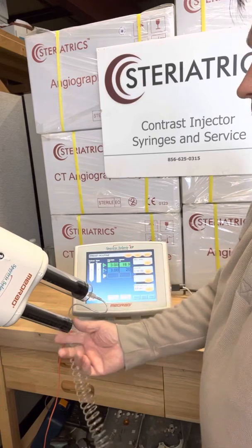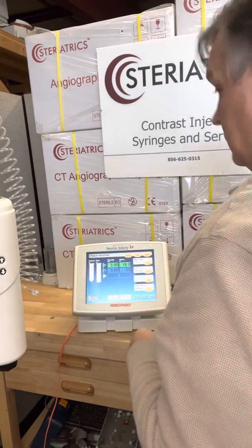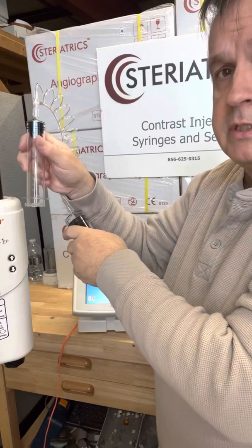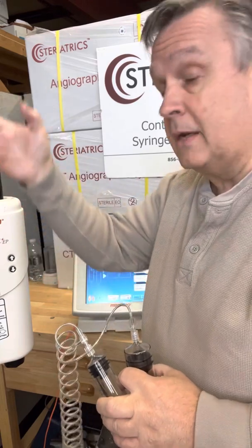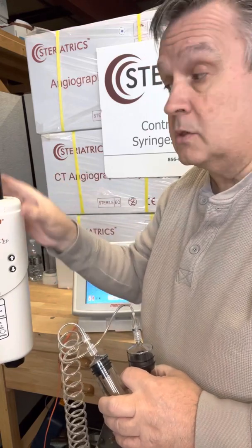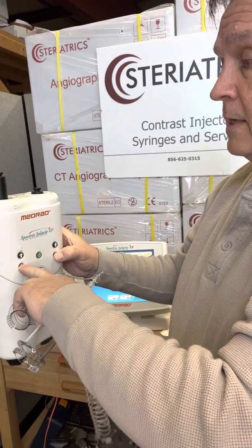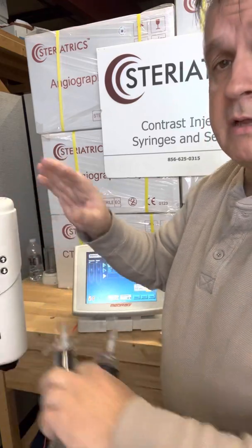At this point you just hit OK. You can actually disconnect from the patient, of course. Once you're done disconnecting the patient, go ahead and turn your syringe and remove. Now, a lot of you are going to want to save a step by just pushing this down and putting on the new syringe — don't do that. This is made of plastic and can't handle that type of pushing; it'll actually break the case inside if you do that. So always retract. You can run them at the same time — press the enable button and then press the two buttons over here — and then you can retract. This way you don't have to worry about anybody coming by and hitting these, and you're all set to hook up for the next time.